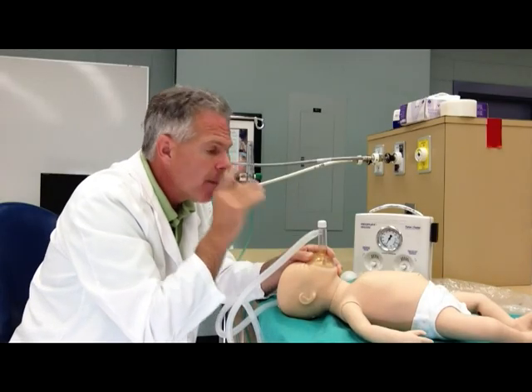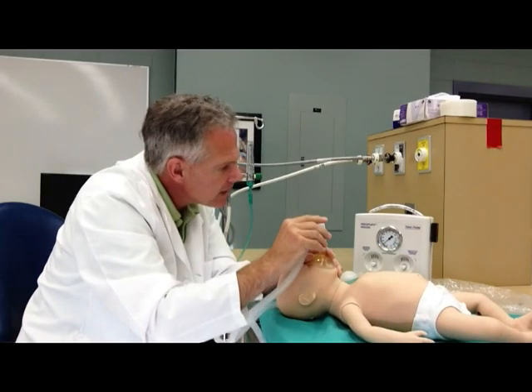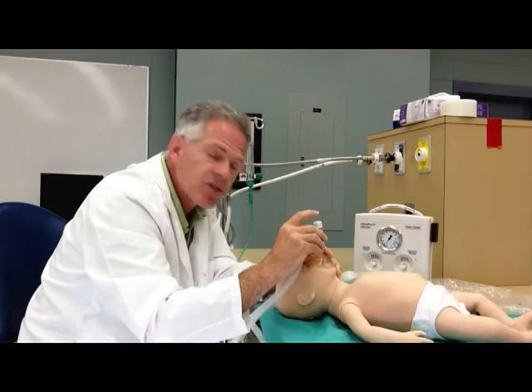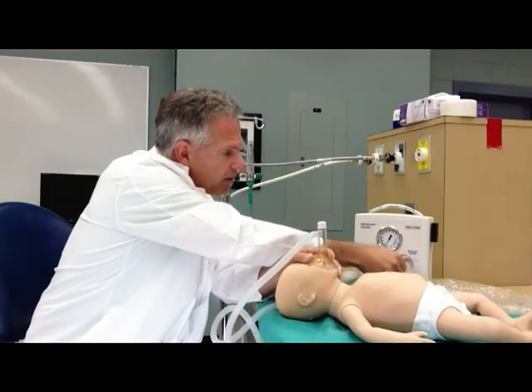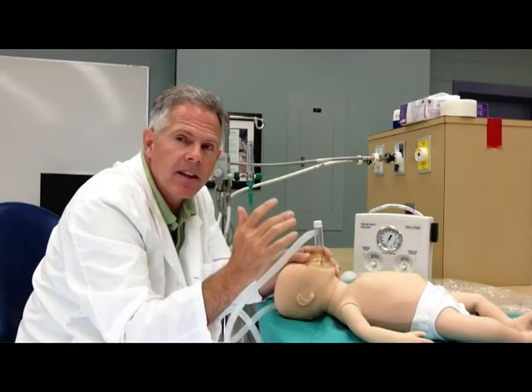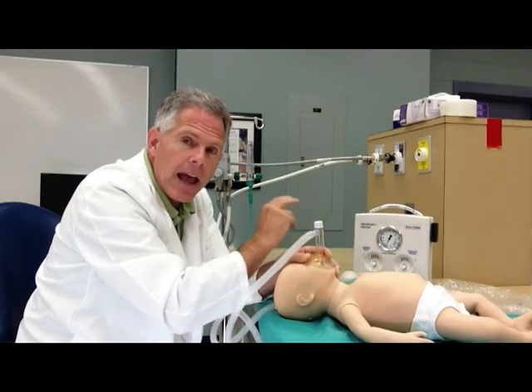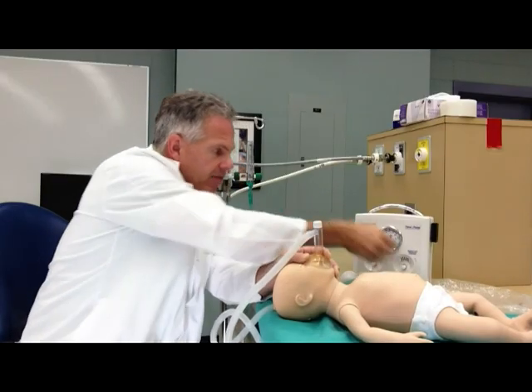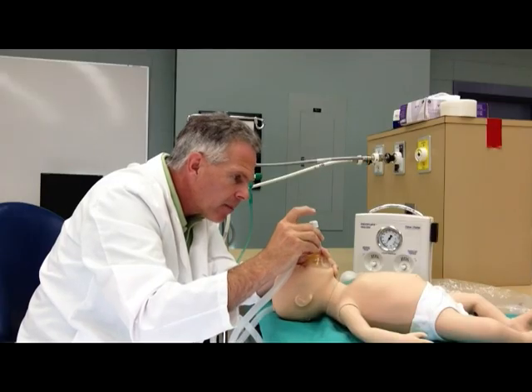It's important that you actually watch the chest rise. I've selected 20 on 4, but you may not need 20 on 4 to ventilate your patient effectively — maybe you could get away with a little bit less pressure. Right now I'm getting a little bit of chest rise with 18 on 4. The other case is also possible where you actually need a little bit more inspiratory pressure. When using the Neopuff, don't be fixed on pre-set numbers. You have control over inspiratory pressure and PEEP level right at your fingertips, so it needs to be set up close for your use. For our mannequin here, using about 20 — maybe a little bit less — I'm getting pretty good chest rise.